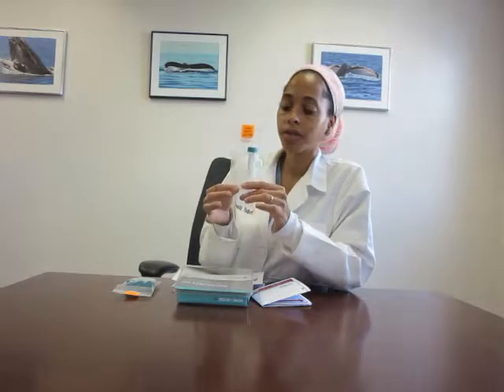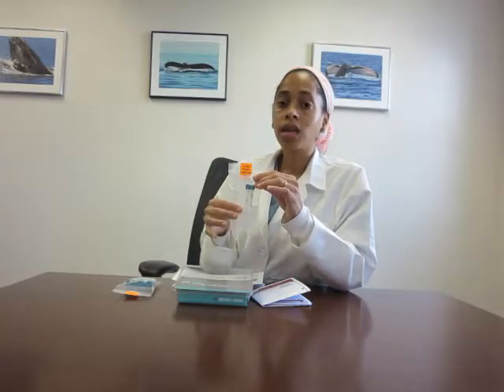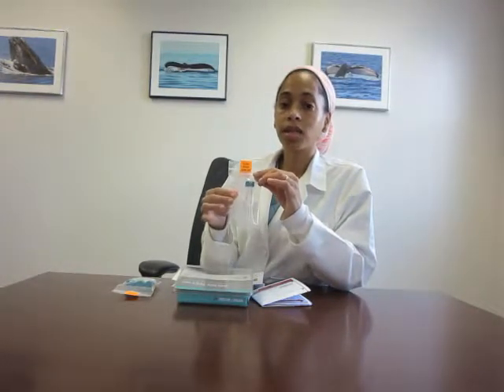You don't have to collect it all within a minute — it can actually take up to 15 or 30 minutes at a time to do the full collection, and that is fine, because sometimes people do have trouble collecting the spit. One thing to remember is that you can only rinse out your mouth with water before collecting the sample.